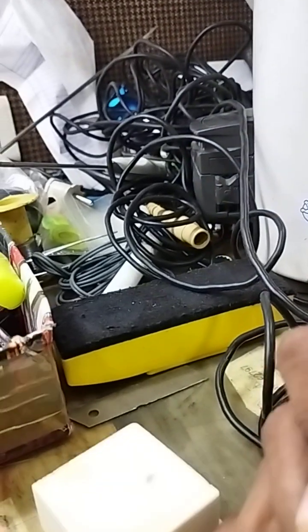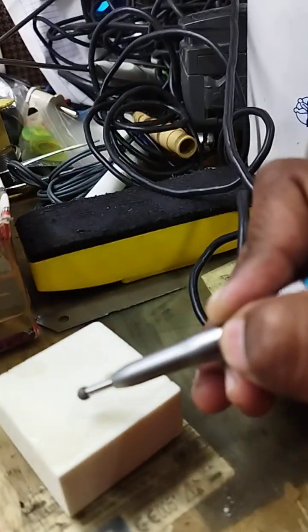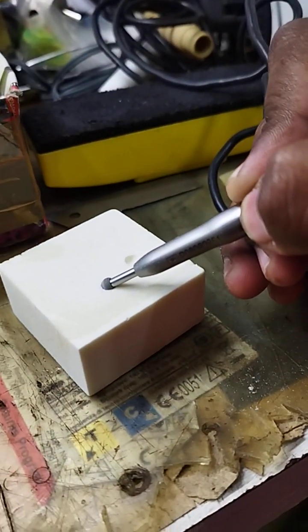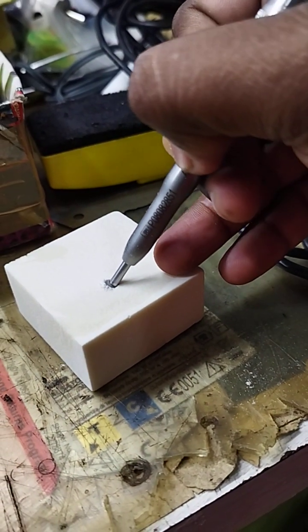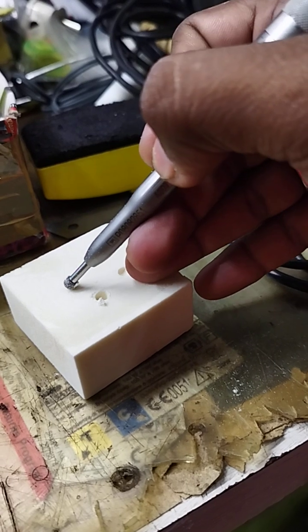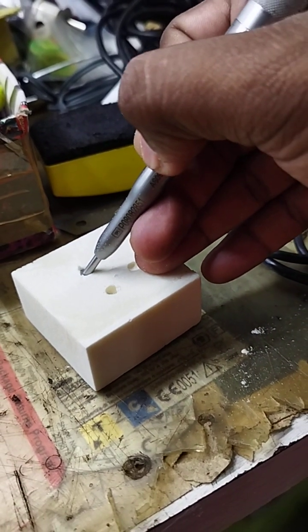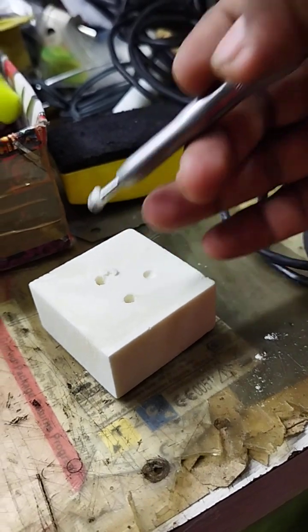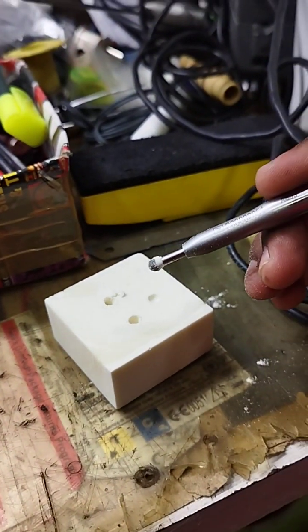Now it is working good. You can see this — I'm going to drill out to show how it really performs. It's fully drilling out. You can see, right now it's working fine.